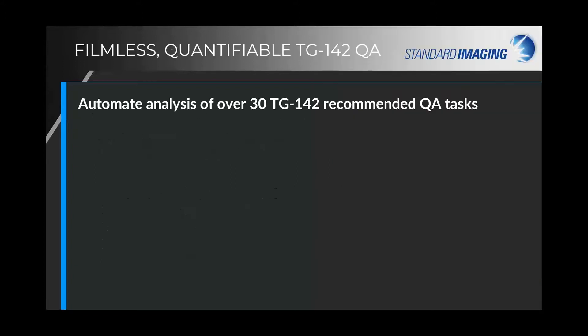Today I'm jumping into our PIPs Pro software. This is a quick overview — a 10,000-foot view — and I hope to get you through in about 20 to 25 minutes. Basically, we can automate the analysis of over 30 TG142-recommended QA tests, including MV and KV imagers, 2D planar QA, as well as cone beam CT.